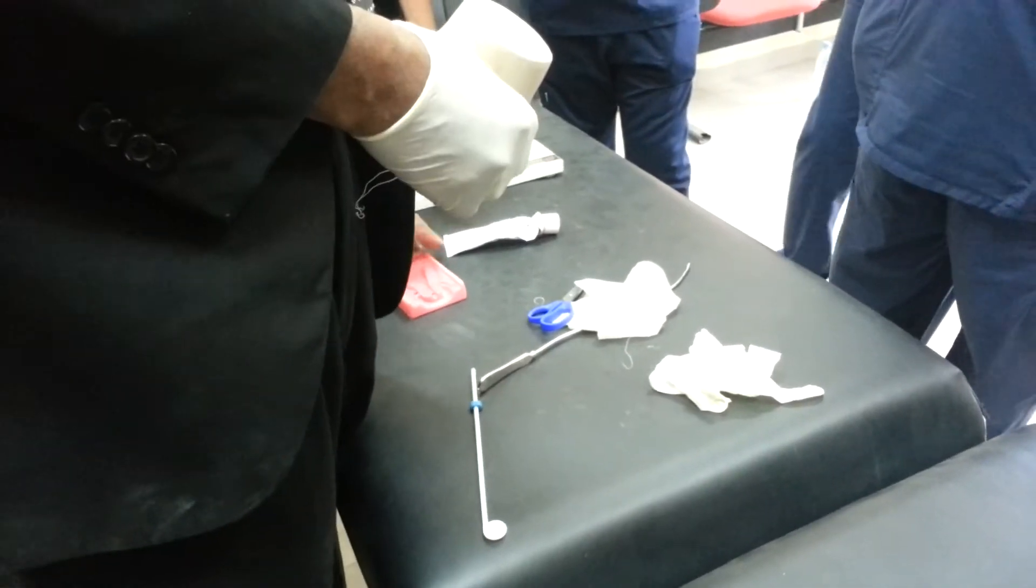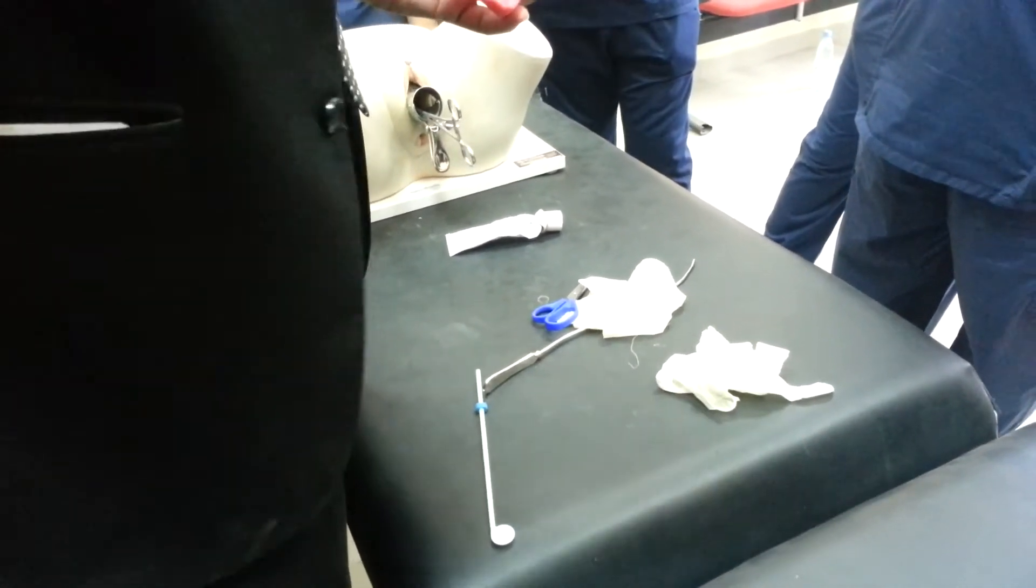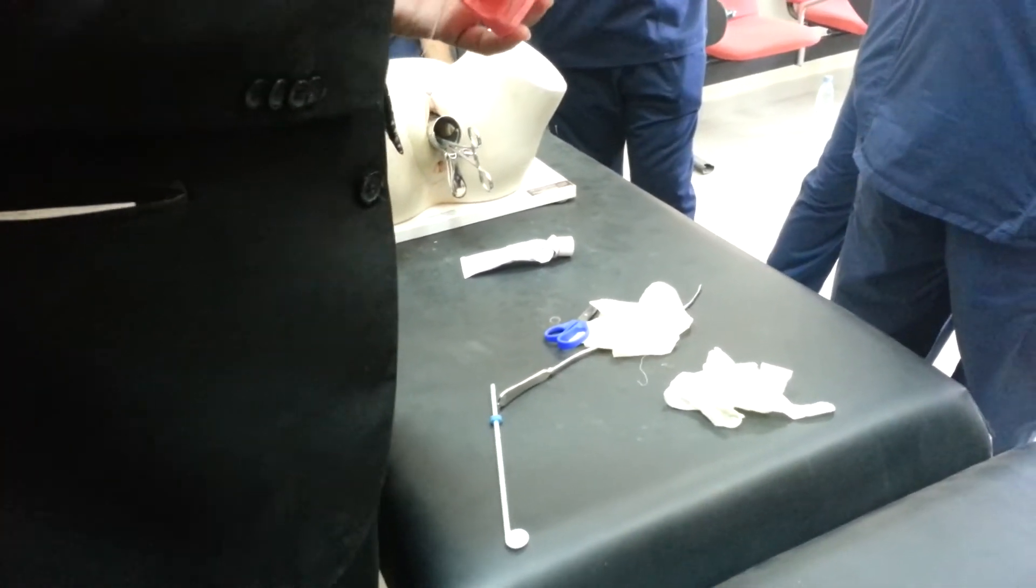Usually if it stays inside the uterine cavity, it will lead to an inflammatory process inside and prevent implantation of the fertilized ovum in the uterine cavity.